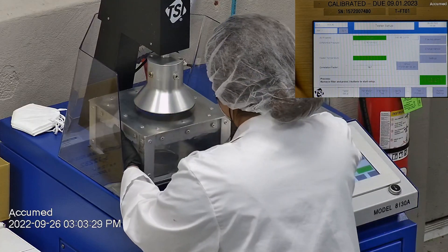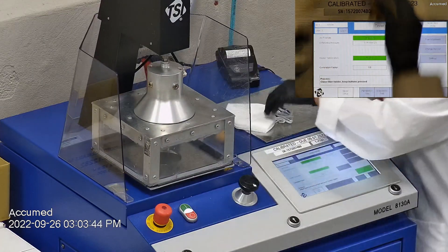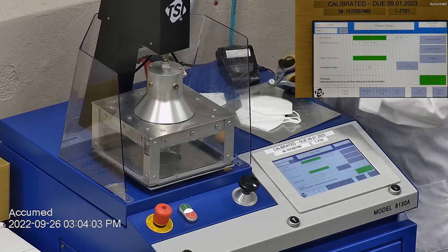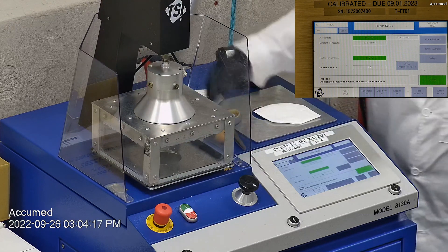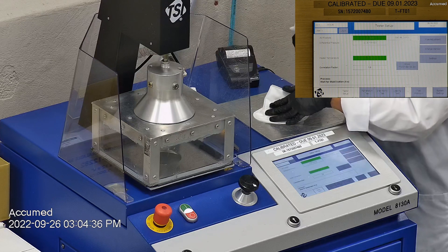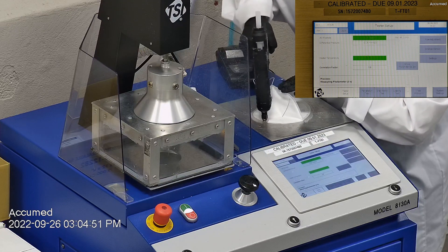With that being said, let's go ahead and see all these tests on our TSI machine. We're going to be testing both the filtration efficiency and pressure drop. This is our TSI machine, model 8130A, which is also the same filtration testing machine that NIOSH uses to approve N95 respirators. Our procedure is also inspired by NIOSH. We first run a tester setup and start by removing the headband from the respirator before placing it onto the testing plate to ensure a proper seal. Then we make sure the mask is properly and completely sealed with hot glue to the testing plate. When applying the hot melt glue, we make sure there are no holes or leakage around the seal to ensure accurate results. The testing plate is then attached to the frame and the box is placed under the TSI filter holder for testing. The results are displayed on the TSI monitor.